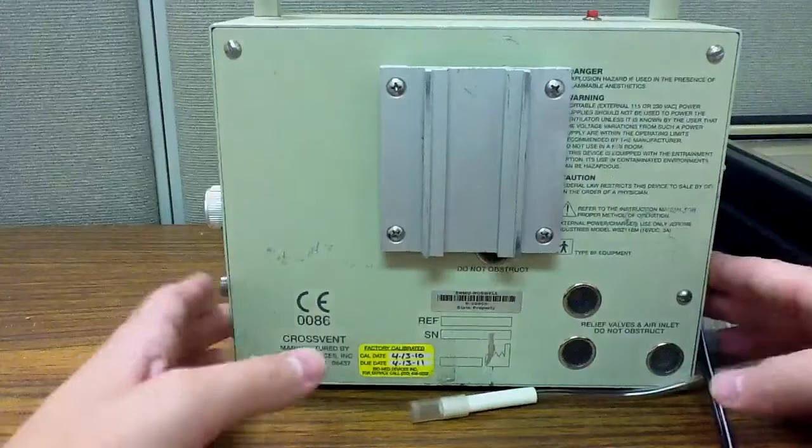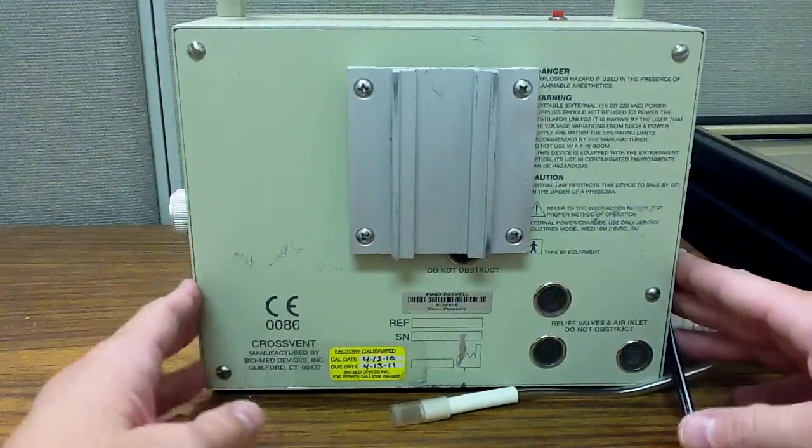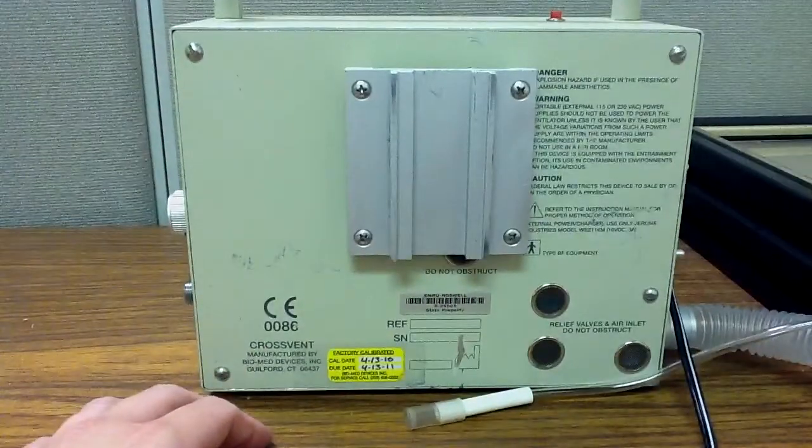Okay guys, now that's it for the basic external characteristics of the Biomed Devices CrossVent 4. Thanks for hanging in there.